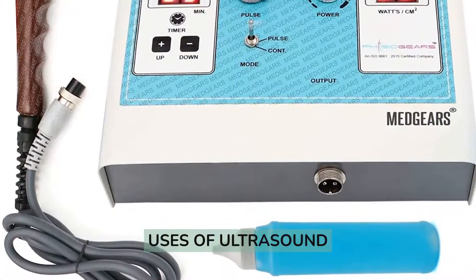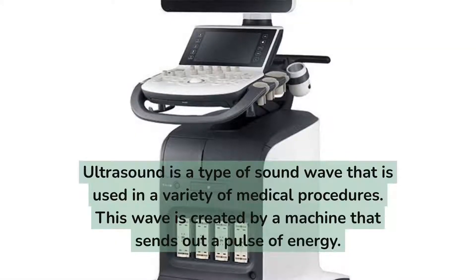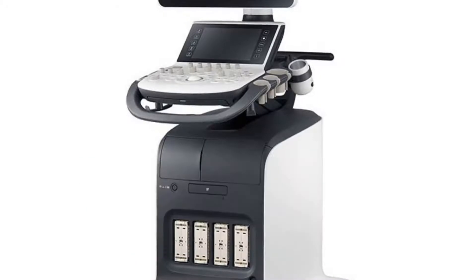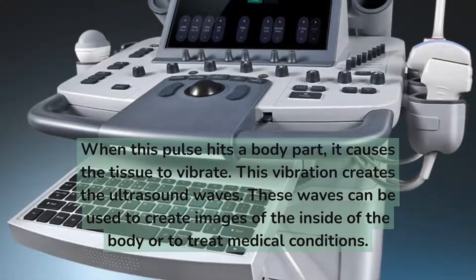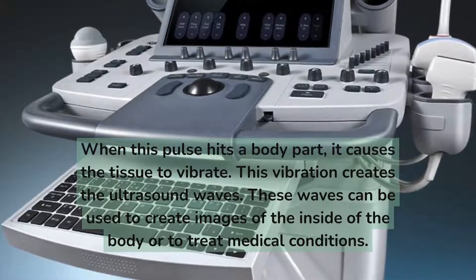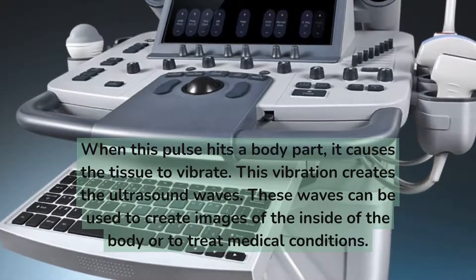Uses of ultrasound. Ultrasound is a type of sound wave that is used in a variety of medical procedures. This wave is created by a machine that sends out a pulse of energy. When this pulse hits a body part, it causes the tissue to vibrate, creating ultrasound waves. These waves can be used to create images of the inside of the body or to treat medical conditions.